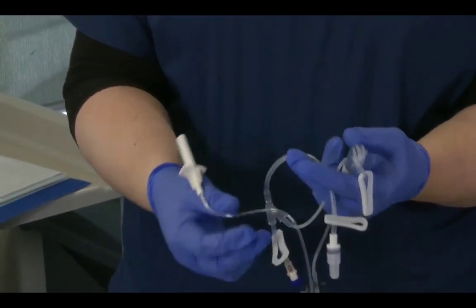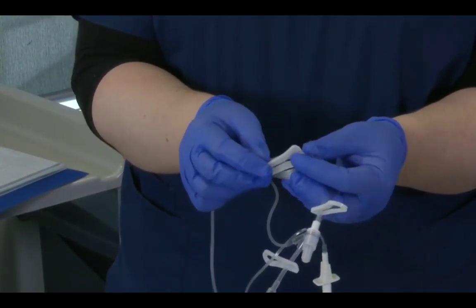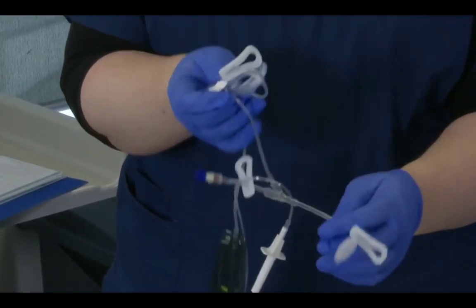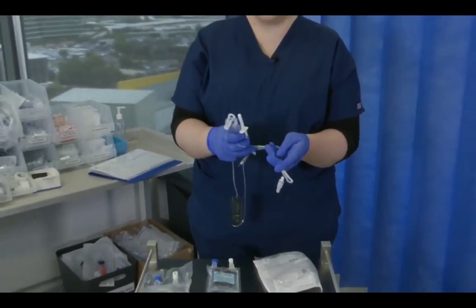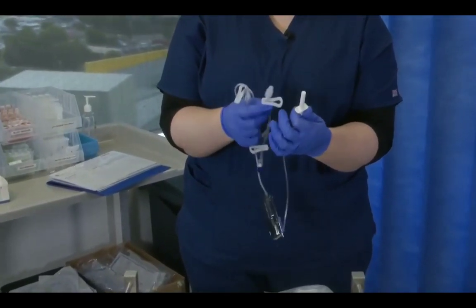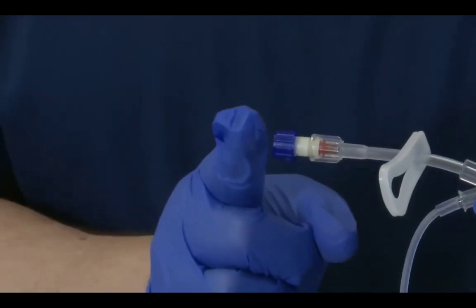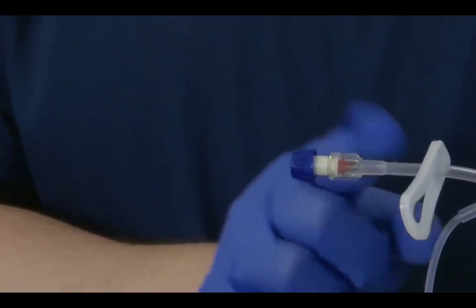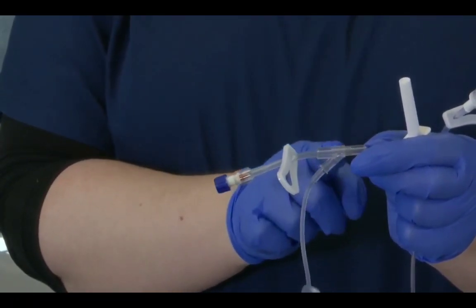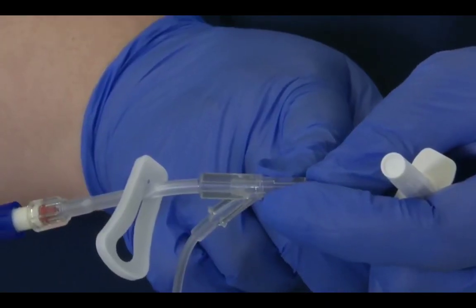The final clamp can usually be found in the big ball of line, and again it's a slide clamp, and we take this opportunity to slide it closed. So now all 3 clamps on this line should be in the closed position. We want to ensure that we've got control of our spike and our far end, but what we're concerned about right now is priming this sidearm. We need to prime the sidearm from where the blue cap is to where it connects to this Y joint just here. So it's literally from here to here, and there's even a little line on here so that you can see where to prime to.